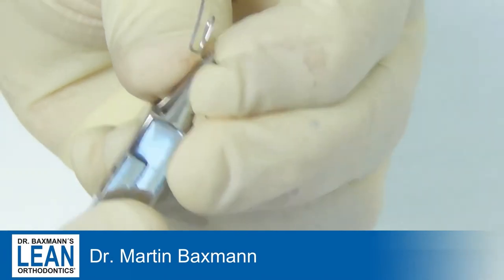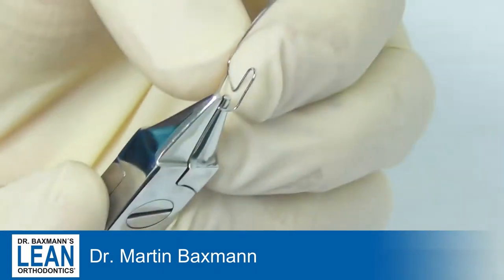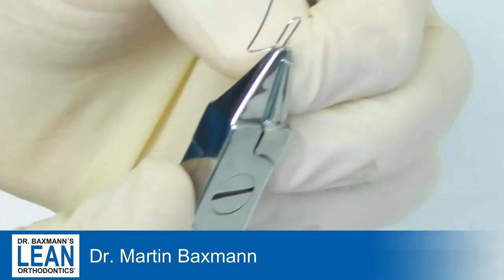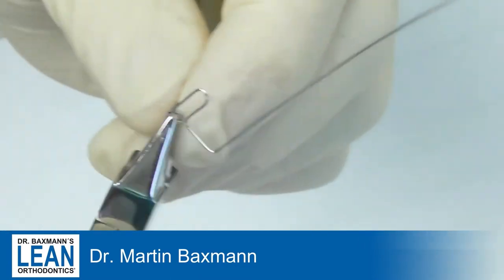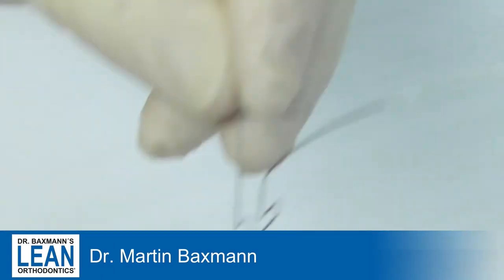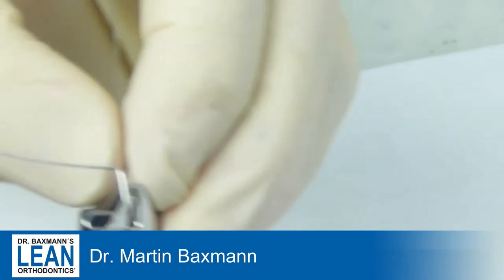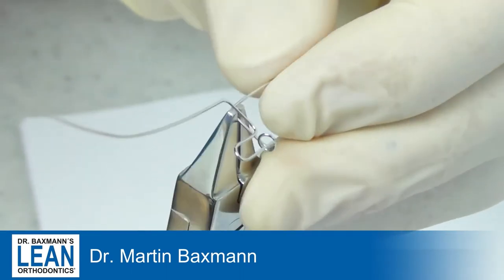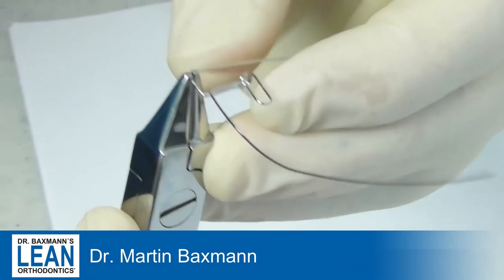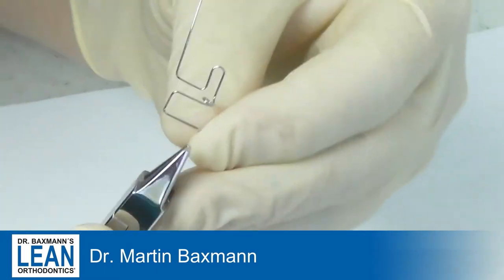Mainly what you can see is that the plier holds the hand bends — that's always what I stress, that's important. Now let's have a look. We started with one part of the T-loop and now we go to a helix part which is rotated by 90 degrees to the plane of the T-loop. There we go — a beautiful double helix. Now we're going to change the direction again and overbridge the part to go over to the next double helix in the same direction as before.